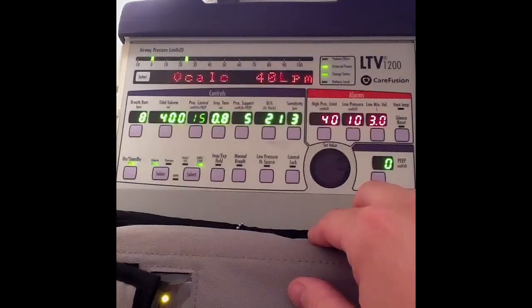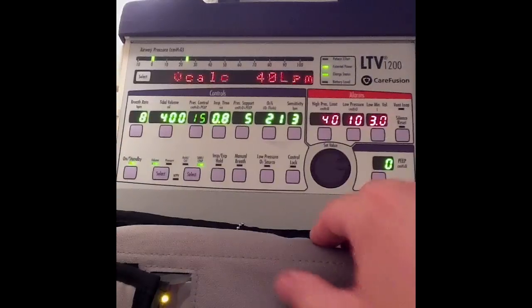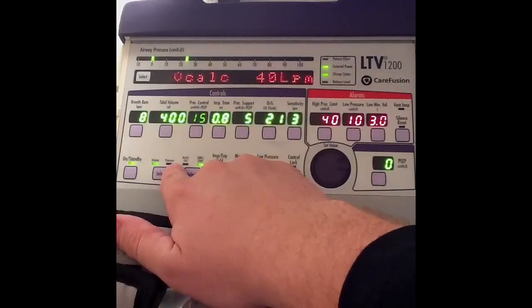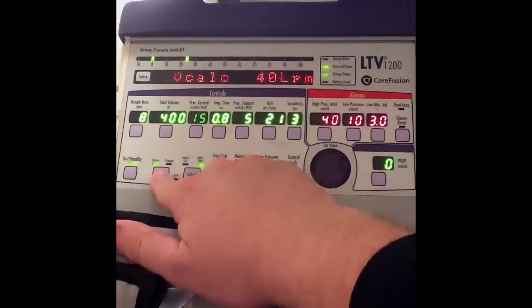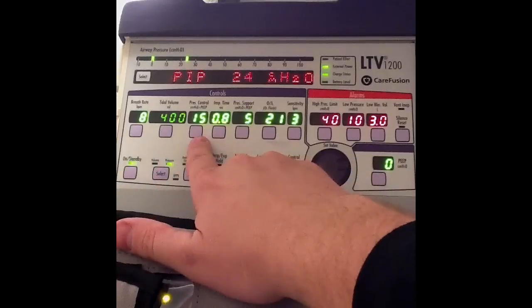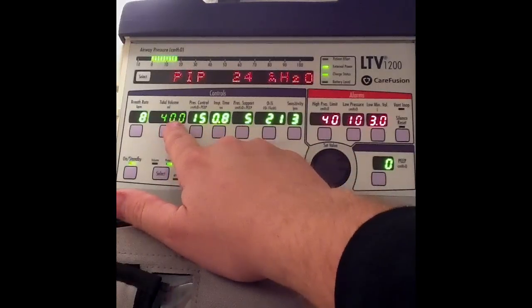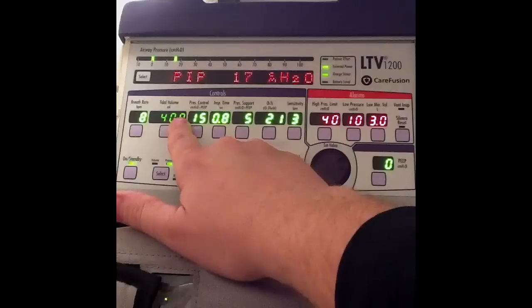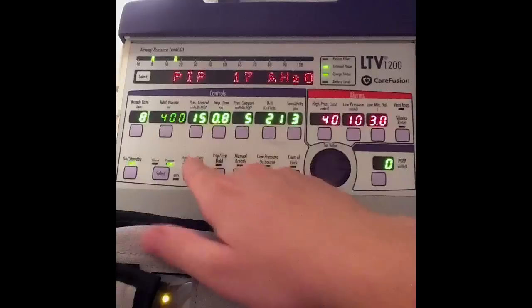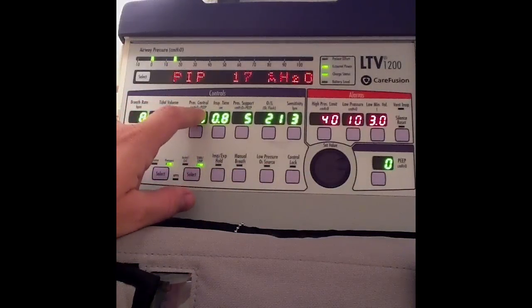That's how I switch between modes. Now let's talk about switching between types of ventilation. I'm currently in volume control ventilation and I want to go to pressure control ventilation. I hit select, hit it again, and it puts me in pressure control. You can see that tidal volume is now dim because I don't set a tidal volume in pressure control — I set a pressure.